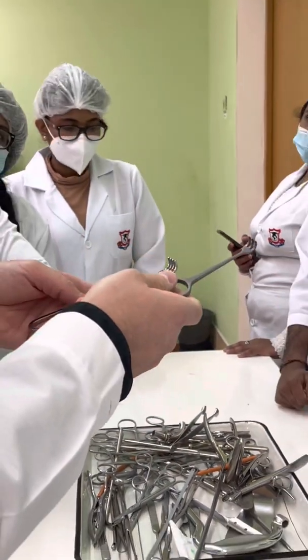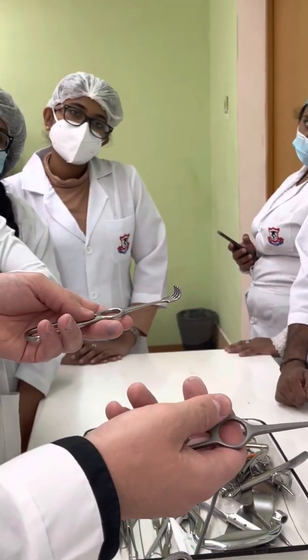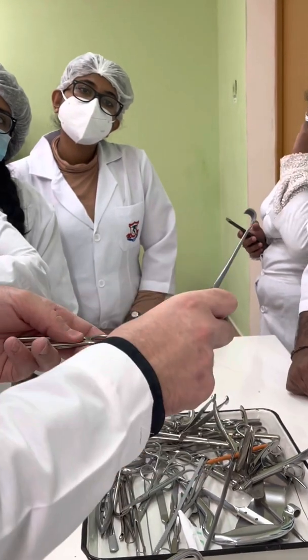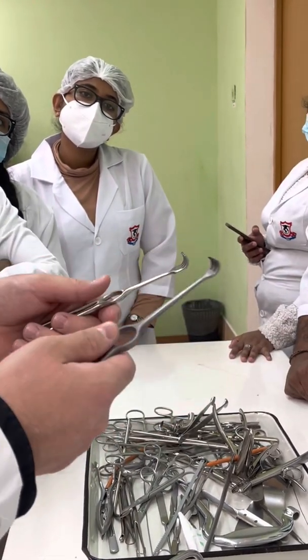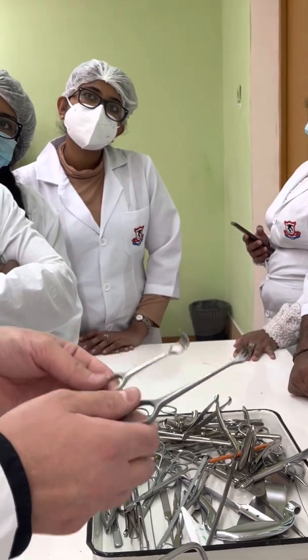Whatever you see, the same name you will use — depending on the situation and condition: how many teeth, and whether they are sharp or blunt.